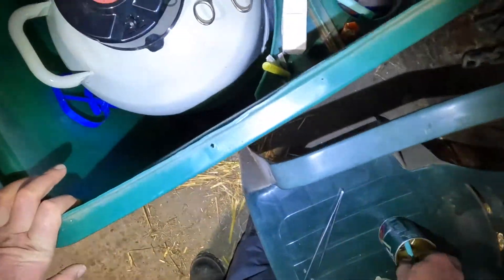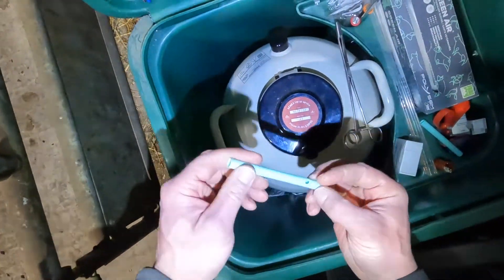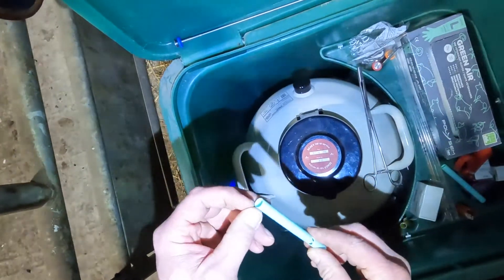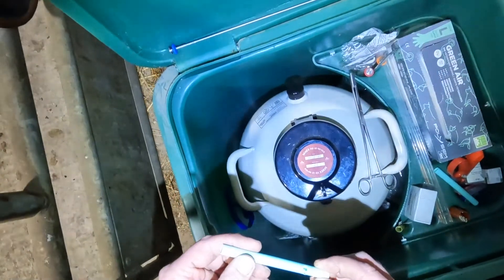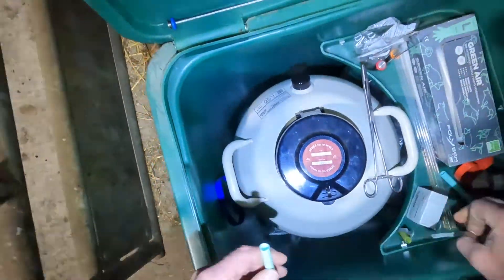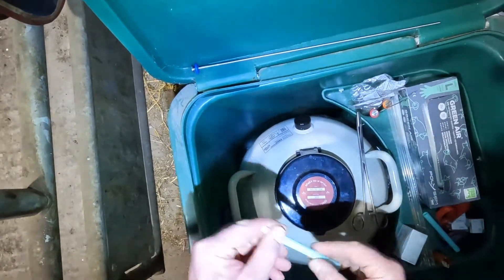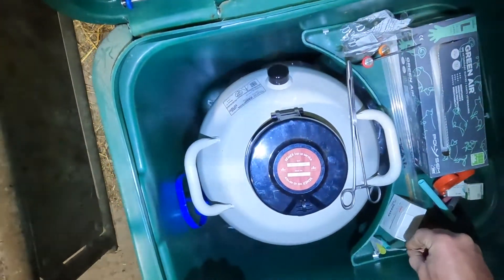As an alternative to those pots, you get this type with the punched hole in it, that lets the liquid nitrogen in quicker, so it should reduce the risk of boiling. The only bit I don't like about these is where the holes are punched, you do tend to snag straws if you're moving around. You can also end up snagging your marker peg in them when you put it in, so just be mindful that not everything is plain sailing — if you've got a peg in there and you try to put straws down the inside, it will force your straws out of the hole.